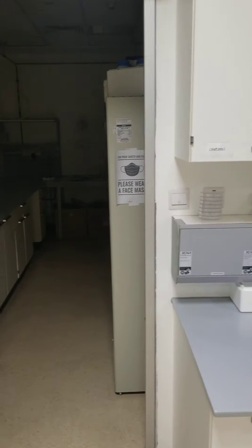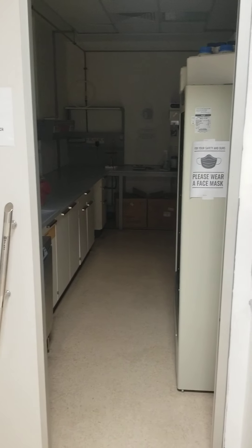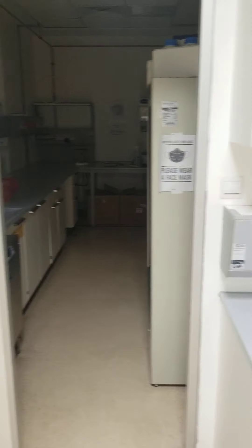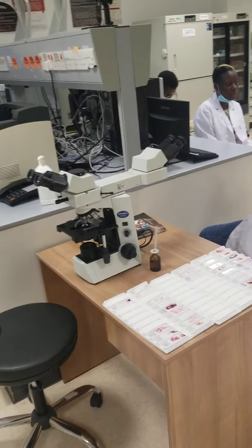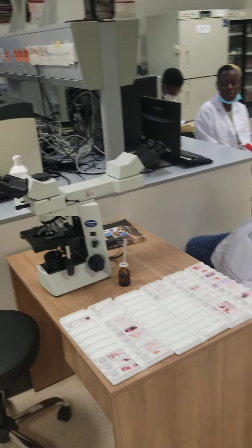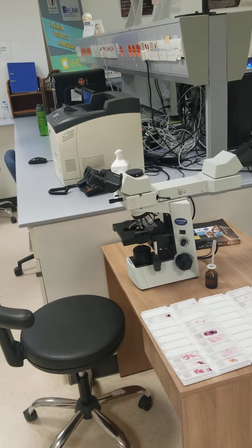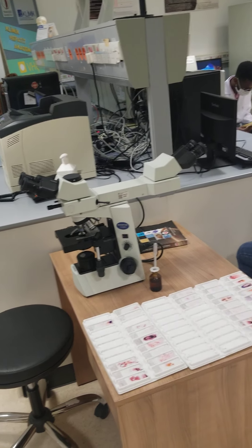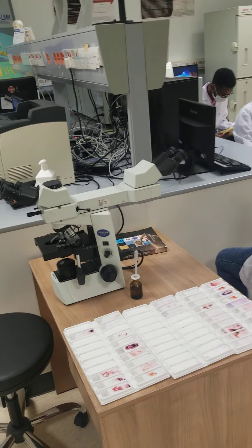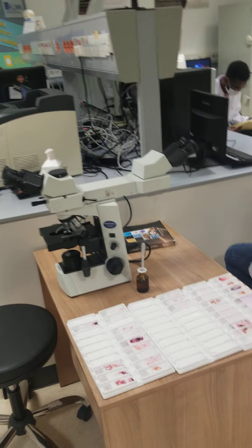There is also Salmonella-Shigella agar and several other agar plates here. This is our parasitology section — we do malaria here, semen analysis, and sperm count.